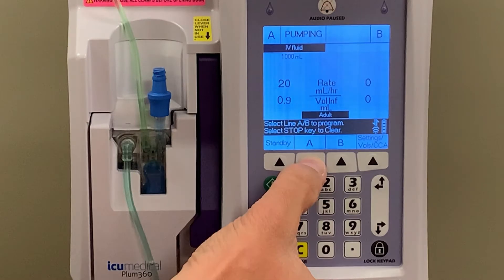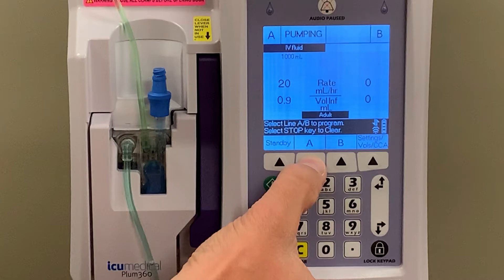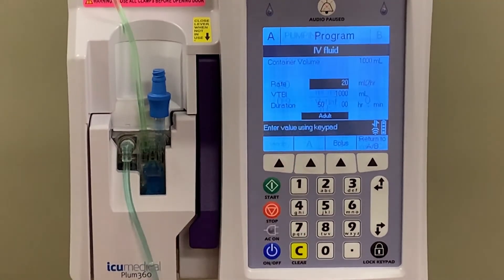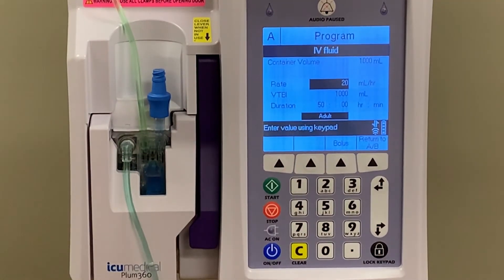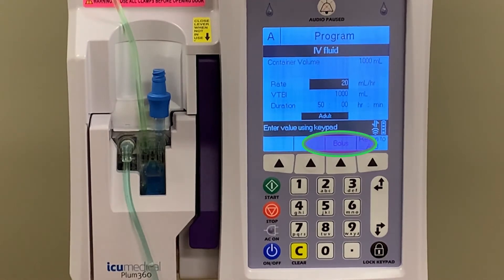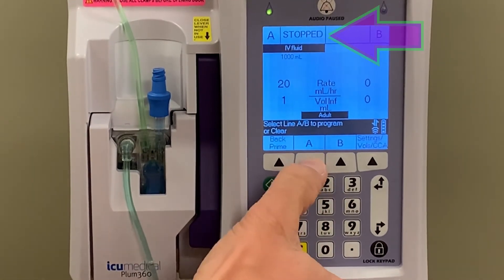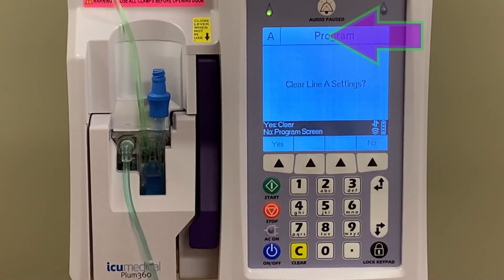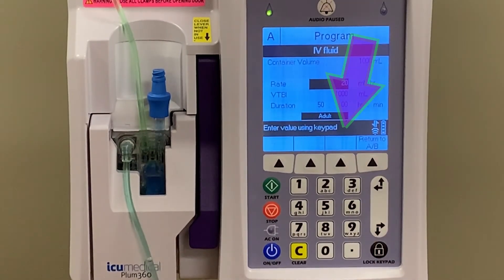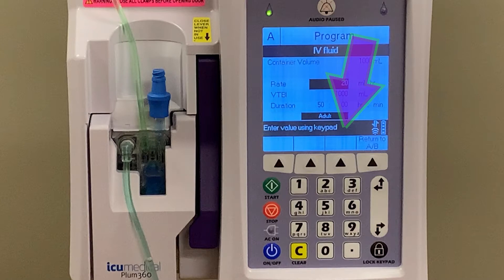While the medication is actively infusing, push the soft key for the line program that you wish to bolus. For this example, we will be bolusing IV fluid from the A line. You'll see a bolus option on the soft key menu. If we had stopped the infusion before going to the A line screen, we would not see the option for bolus, so make sure that the A line is currently pumping when you wish to do your bolus.